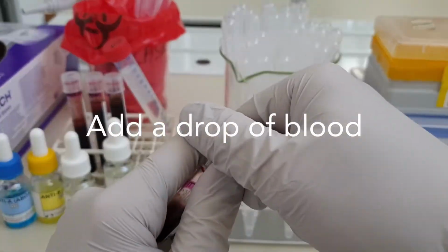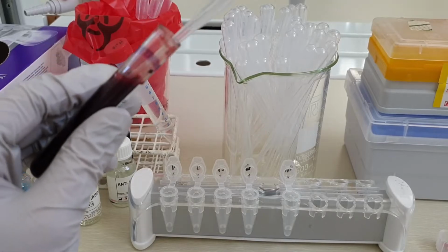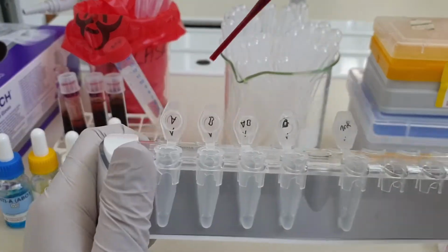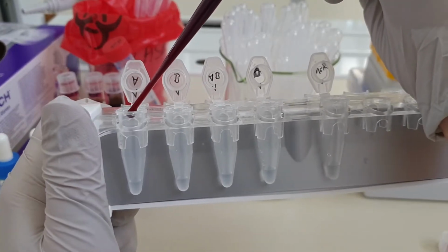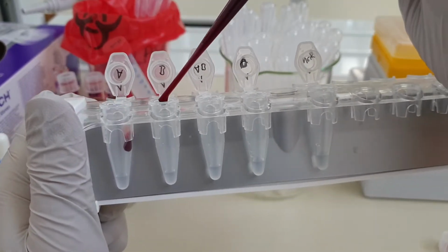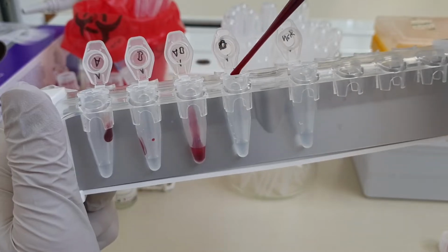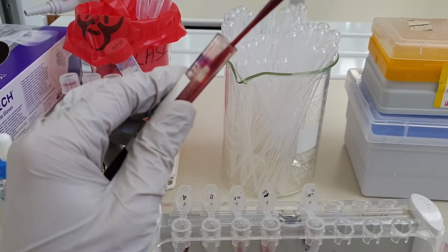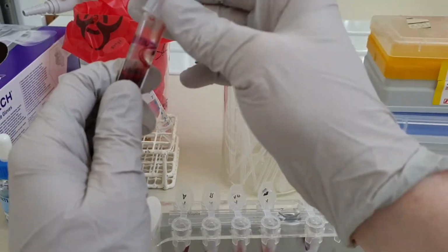Alright, you see the volumes aren't exactly even, but that's okay. Now we can add a single drop of blood to each tube. It can be a little tricky to get the drop to hit the bottom of the tube. That's fine, since we're going to mix the contents anyway. Once we've added the blood, we give each tube a flick or two and make sure the solution is nicely homogeneous.